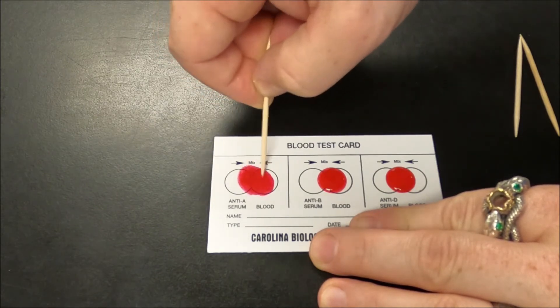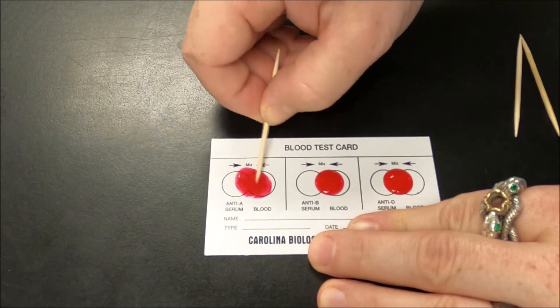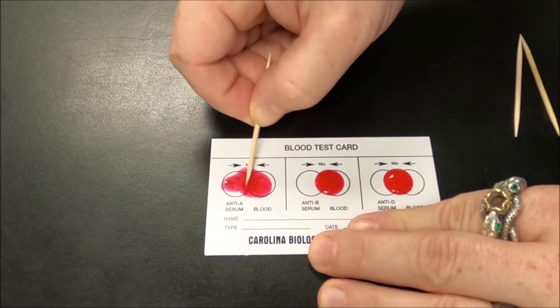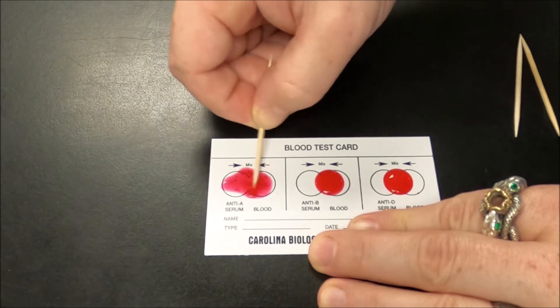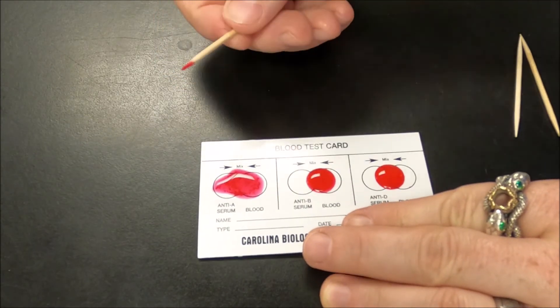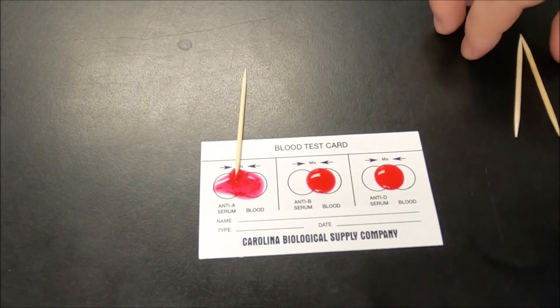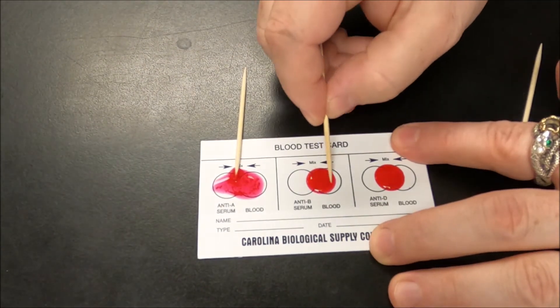Looks like we're getting agglutination there — yeah, it's really going. Look at that — just bits and pieces in there. Next let's do B.